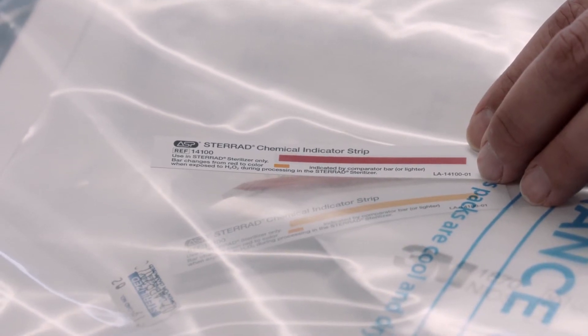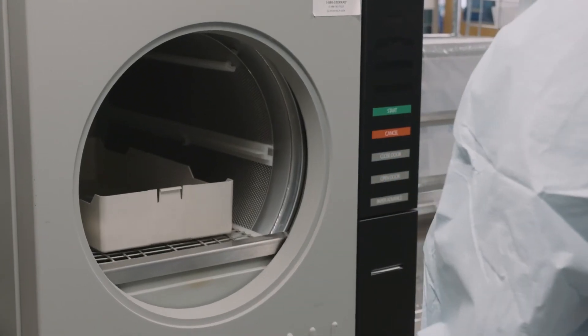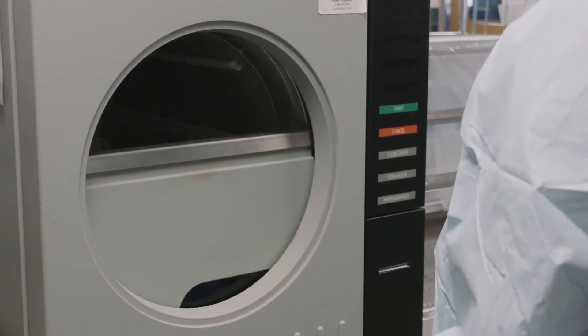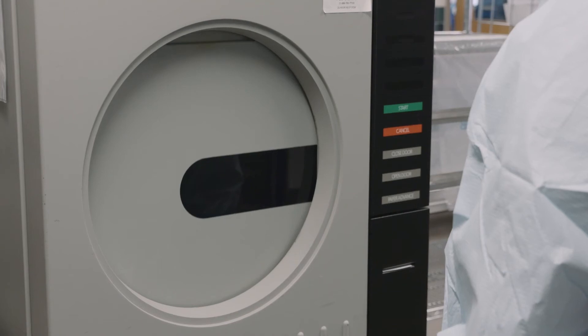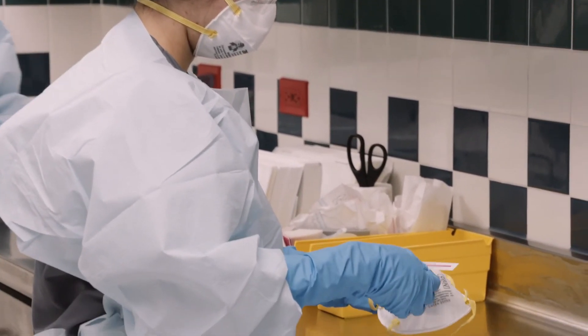Each mask is returned to the provider, who can wear that mask up to four times. The sterilization does not take the place of acquiring new unused N95s, but it greatly expands the hospital's supply.